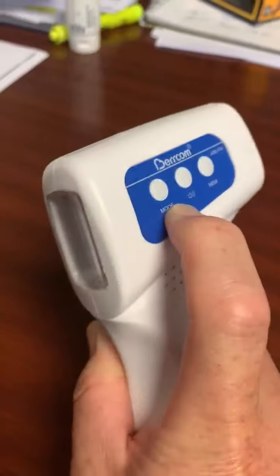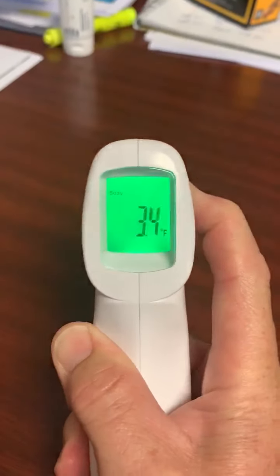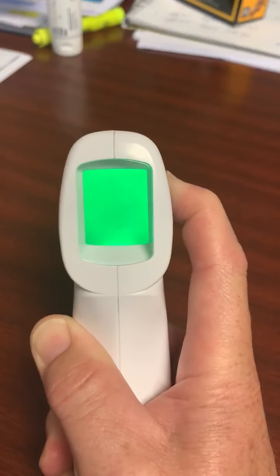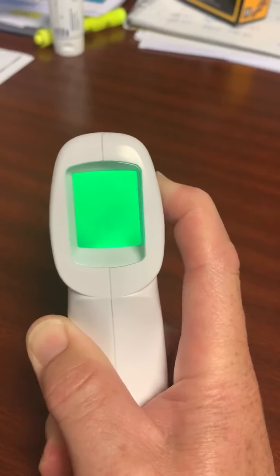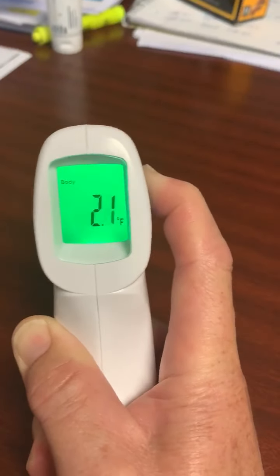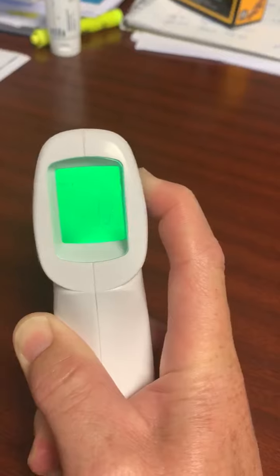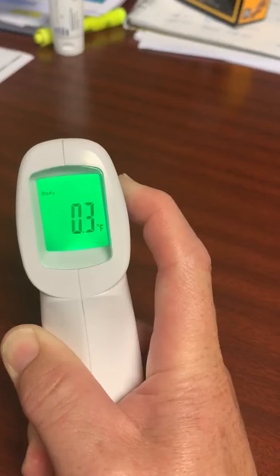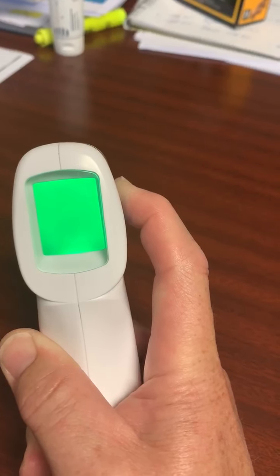I'm going to change that by hitting the mode button — every time I hit the mode button the number goes down: 3.0, 2.9, 2.8, and so on. I'm going to take this down to what I consider to be a normal calibration at 0.3.